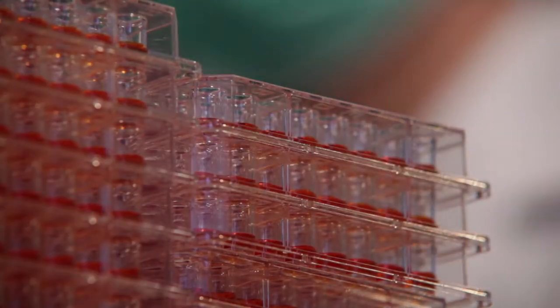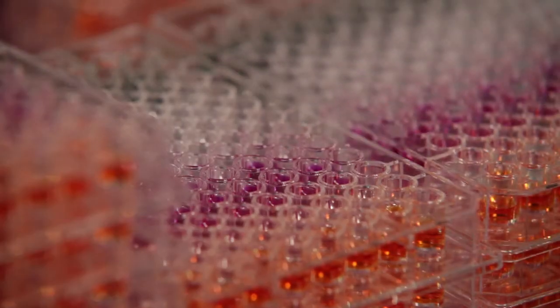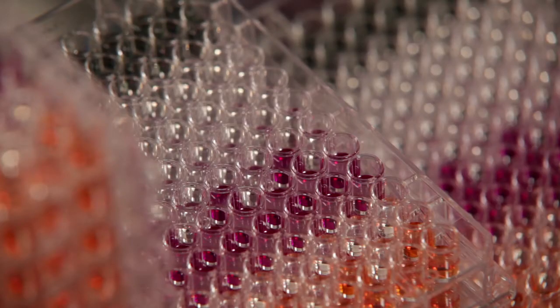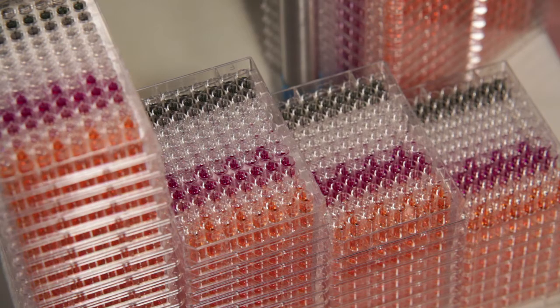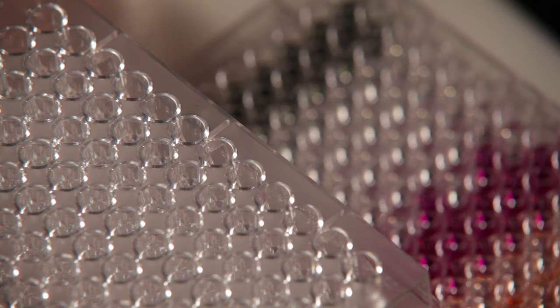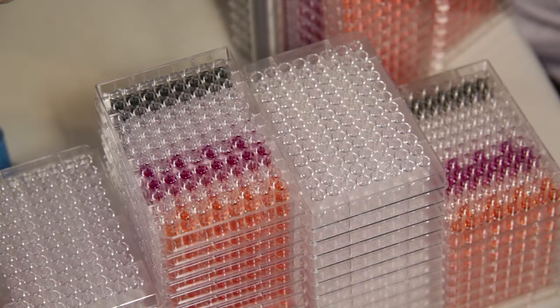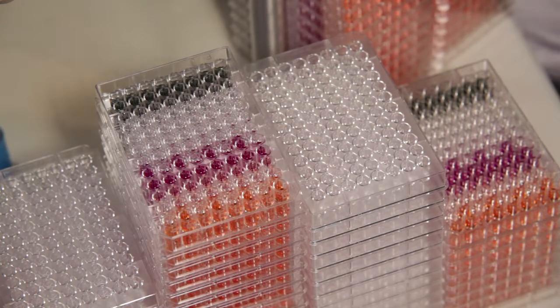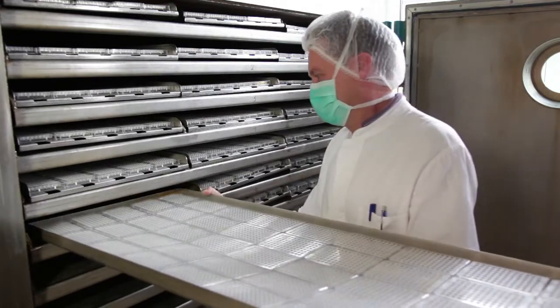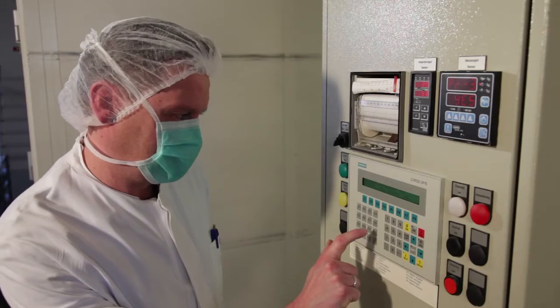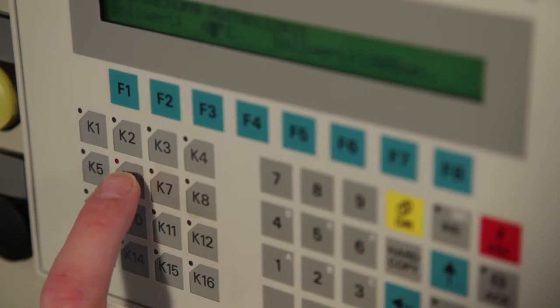The plates can be dispensed with different solutions varying from 12 to 96. Lot sizes from 500 to 2800 microplates can be economically manufactured. Our special vacuum dehydration process enables all Micronaut products to be stored for up to 24 months.